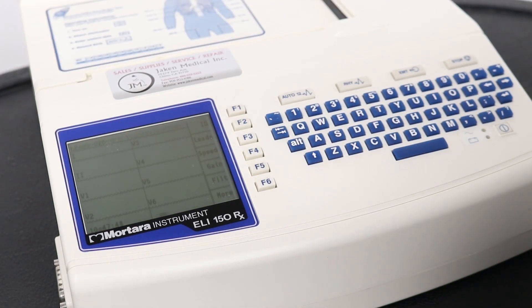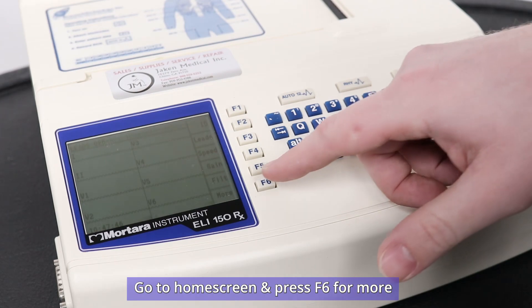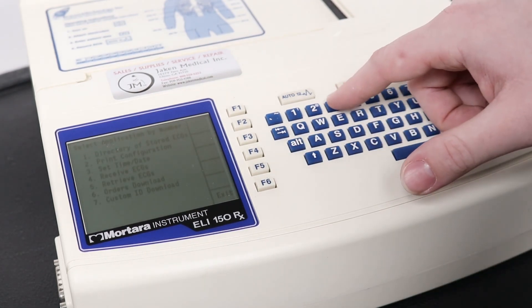To access the service menu, go to the home screen and select F6 for more and three for set date time.